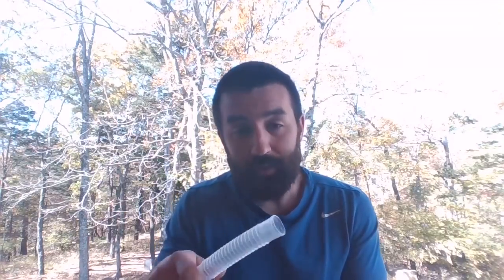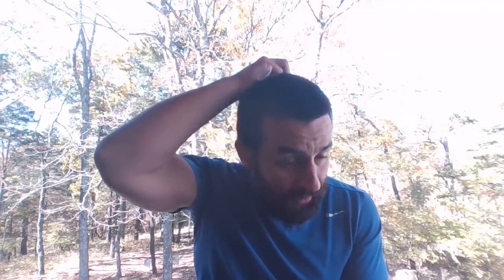Some of these nebulizers I'll show you have a lot of back pressure, and you may not be able to get 8 liters, and that's fine. I know people that run a lot of these nebs all on 6. Now, the faster you run it, more gas going through there, the smaller your particles are going to be, the quicker it's going to run. The slower you run it, longer it's going to take, the bigger your particles.